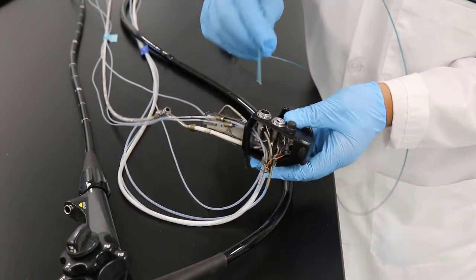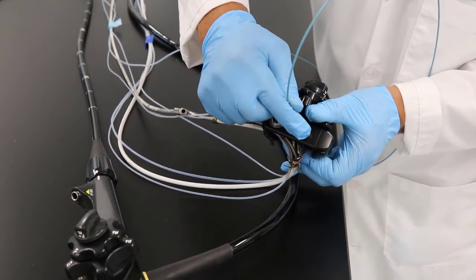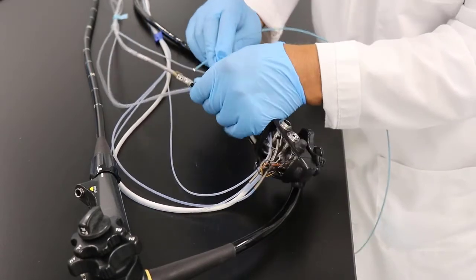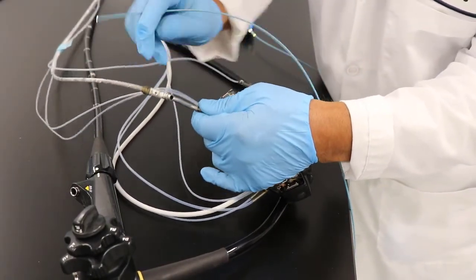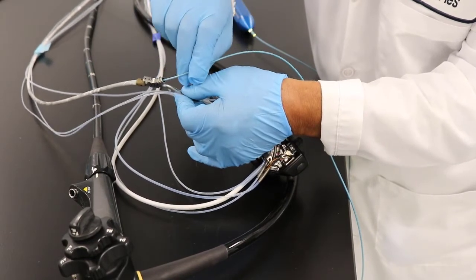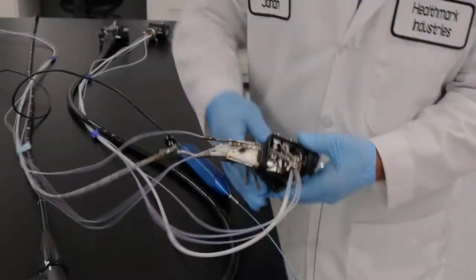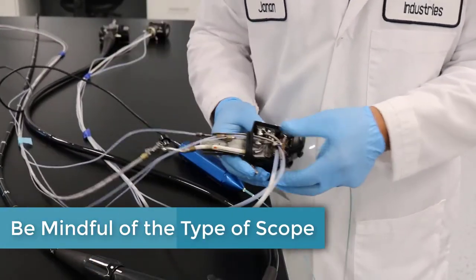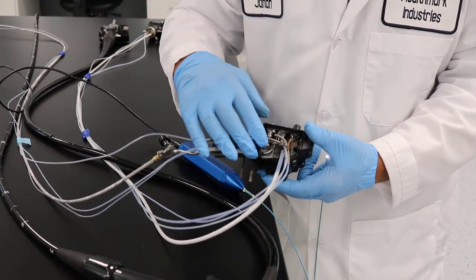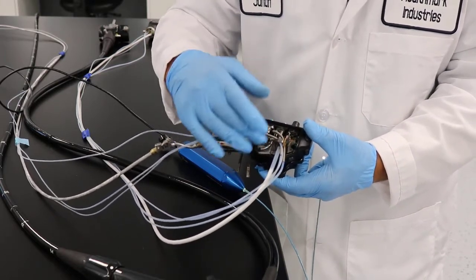Just stay away from that. Look inside the ports and make sure that you don't have any debris or rust, but once you get to the end and encounter some resistance, stop. You see that whenever two different materials are attached to each other, you get a lot of stoppage and resistance — don't force it; just go around that bend. As I mentioned, this is a pediatric colonoscope, so you really need to know your scope. That's the important part — know what kind of scope you have. There are variations between manufacturers, and other scopes will have different bends and curves.